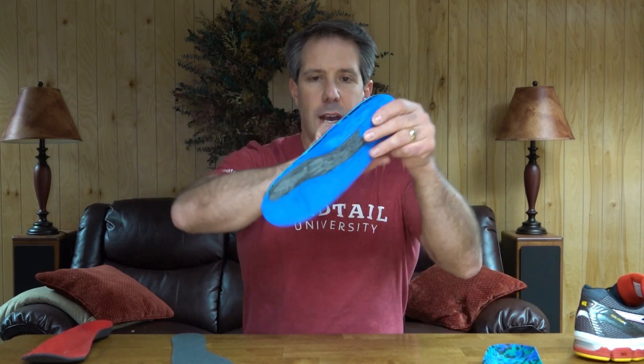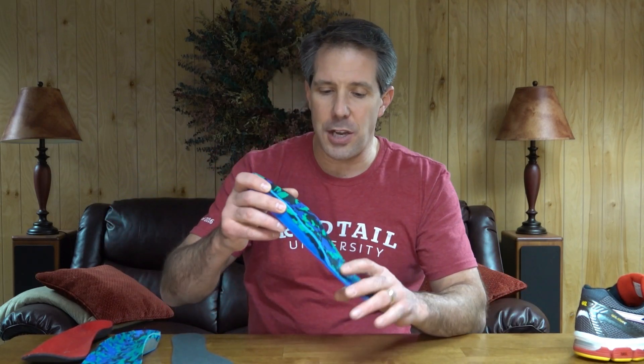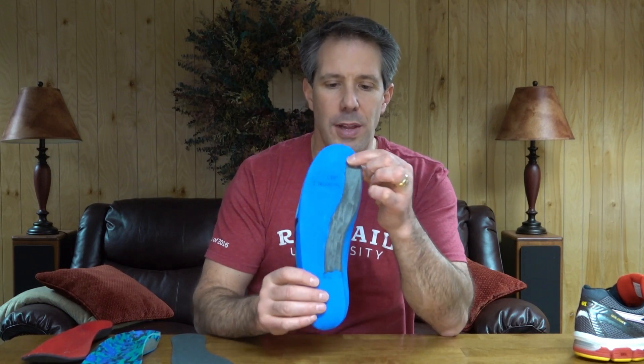One of the things I've been doing lately is using a custom orthotic and having a carbon plate put in right in the area of the big toe, which is usually where the problem is. A typical orthotic would bend quite easily there, whereas this one will not because the plate is there. The gentleman who uses this orthotic — this is his second one, his previous was three or four years old — was very limited with his ambulation and gait because the big toe was giving him a lot of trouble. When he wears this, he's trouble-free and able to walk much more and be much more active. Even if you do a lot of kneeling where that toe bends a lot, you can always add a little piece of carbon plate like this.